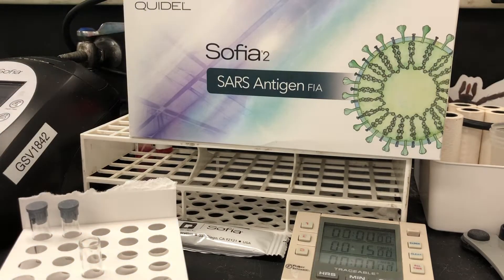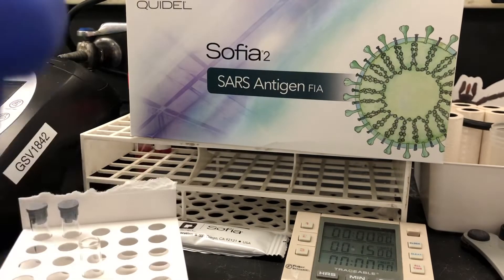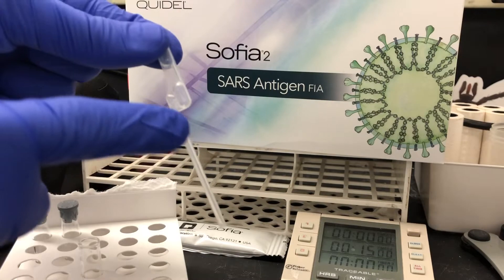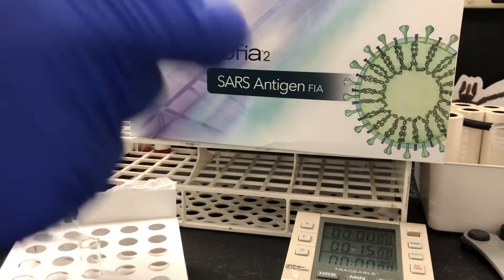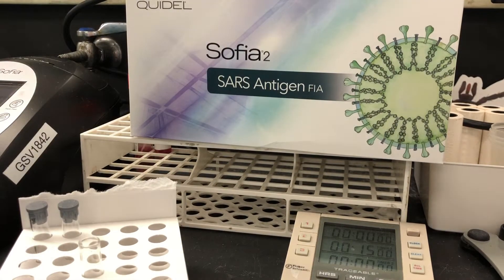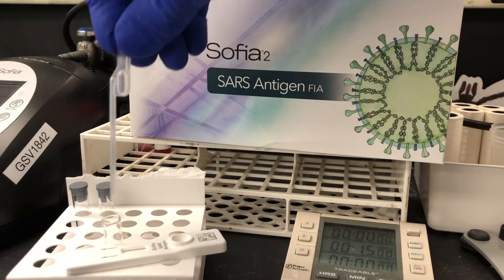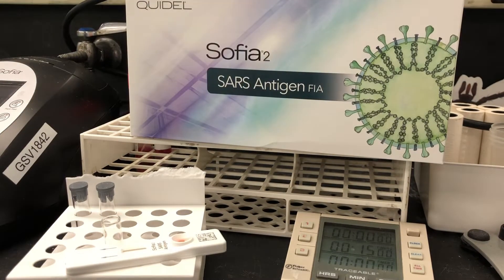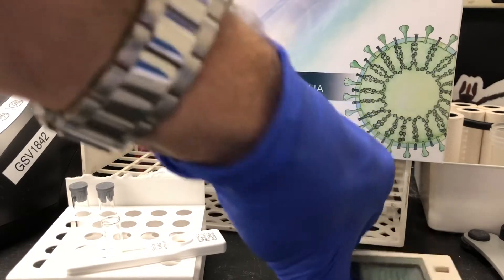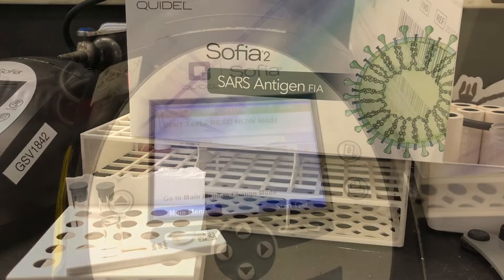Now I have the pipette. You're going to use the pipette, which is designed to only aliquot a specific amount. It has a little overflow bulb on it so that if you pull up too much of the reagent solution, it will ensure you still get the proper volume. Open up your cassette, aliquot some of the solution, and dispense it onto the well of your cassette. Then let this incubate at room temperature for 15 minutes.